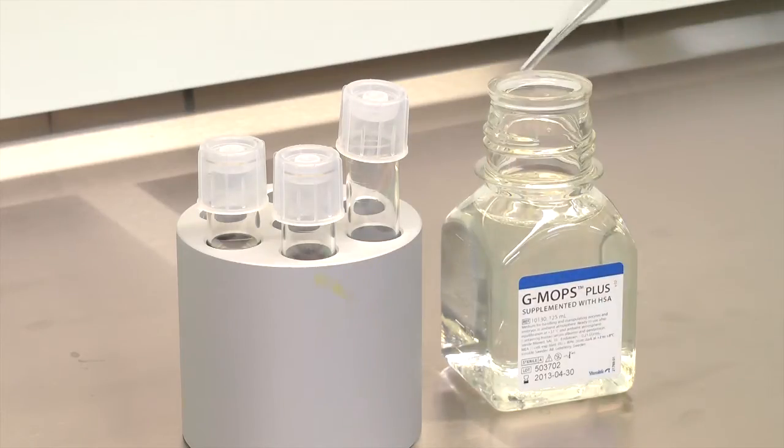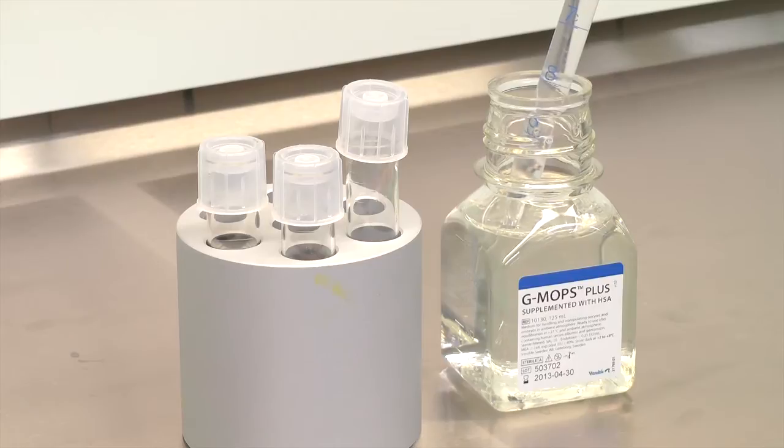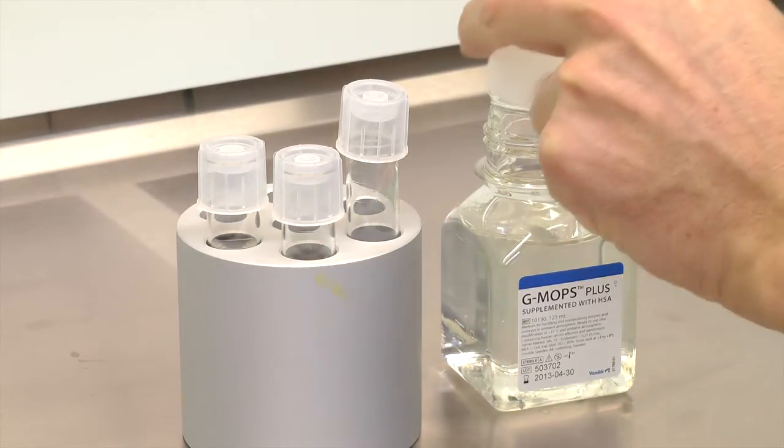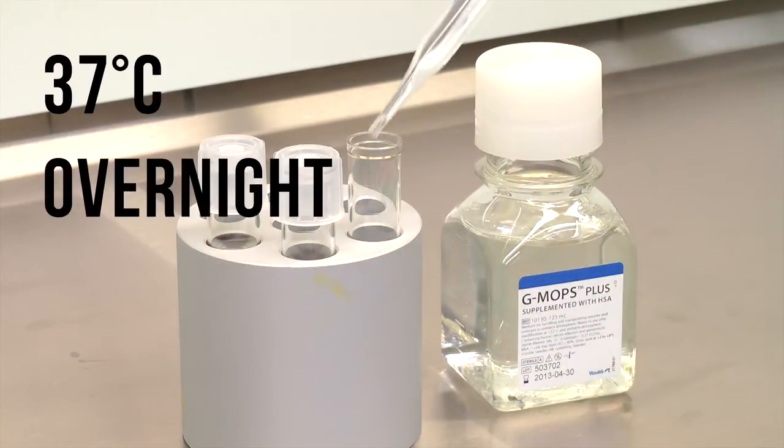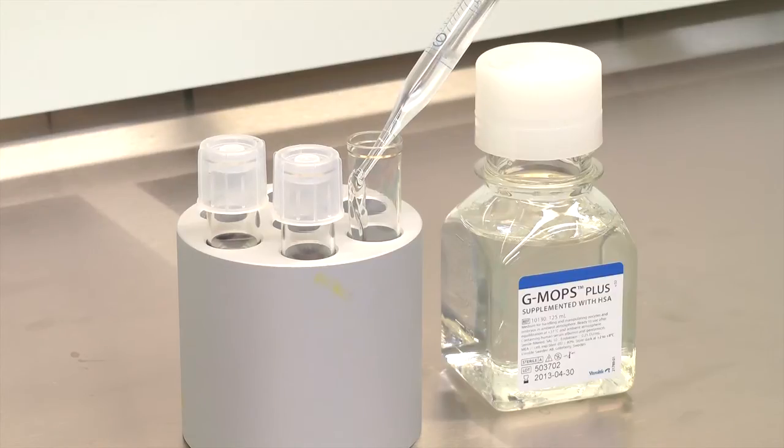GMOPS is a handling media specifically designed to work with zygotes and embryos for longer periods outside of the incubator. You can warm GMOPS Plus in rinsed tubes and tightly capped in an incubator overnight without CO2. Alternatively, you can also use a heated block to warm it up.